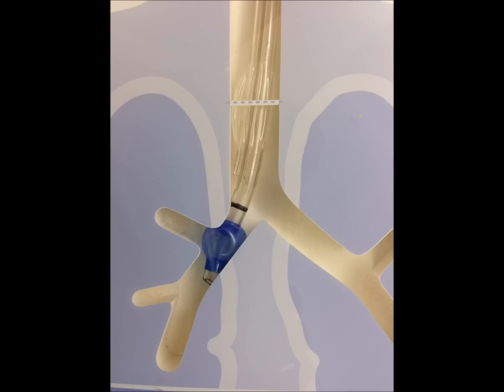Here's an example to show you that if you're not careful — this is a left-sided tube, small and round, not a right-sided tube — but once you get it in place, if there's a lot of twisting of movements and you get disoriented with your bronchoscope, that left-sided endobronchial tube can go down the right side, and then everything's backwards. The tracheal lumen will be lateral, and you'll have high peak inspiratory pressures. You can't go by the appearance of the tube at the mouth once the cuff is up — you really need to confirm it properly to make sure that you're in good shape. And if you do all those things, you'll be happy and the case will go well.